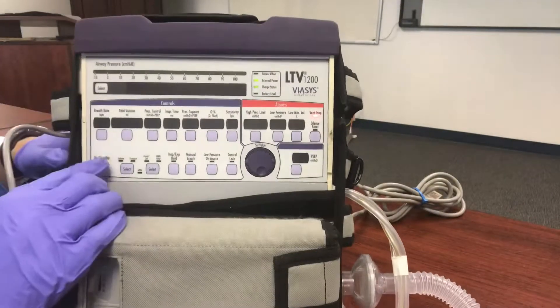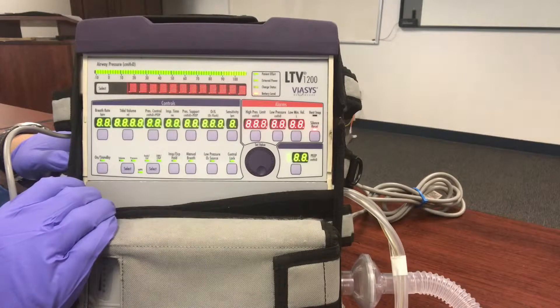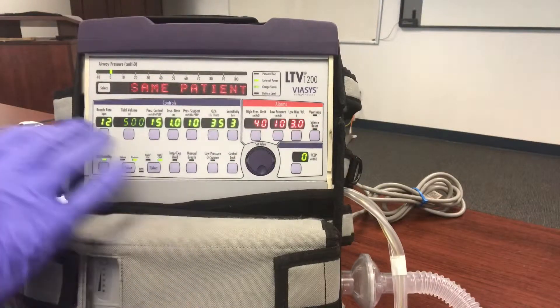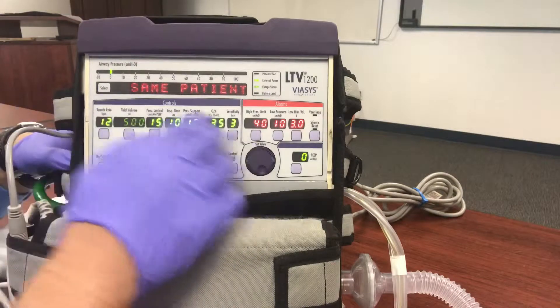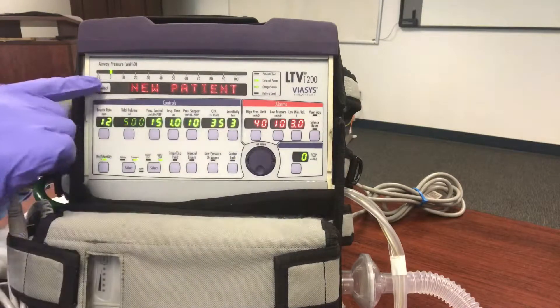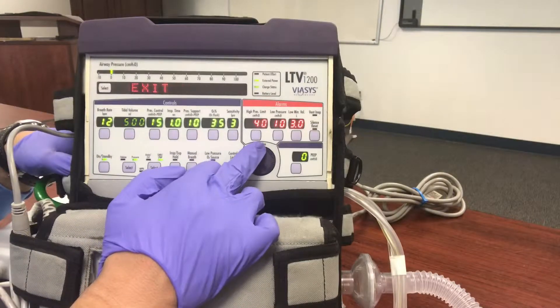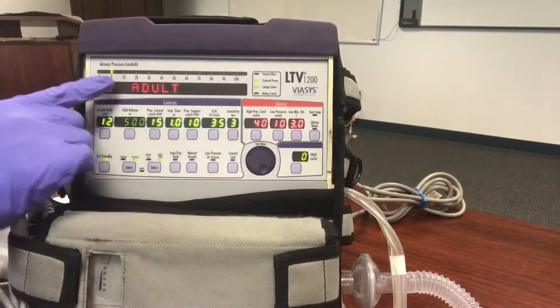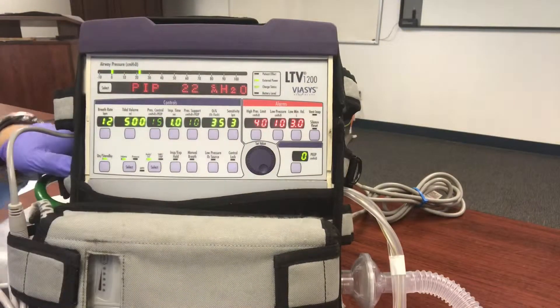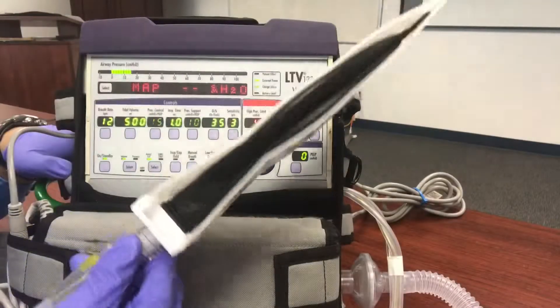Let's get it started. I'm going to turn it on, go to new patient, select, scroll to adult, and select — and it'll kick on to our ventilator mode.